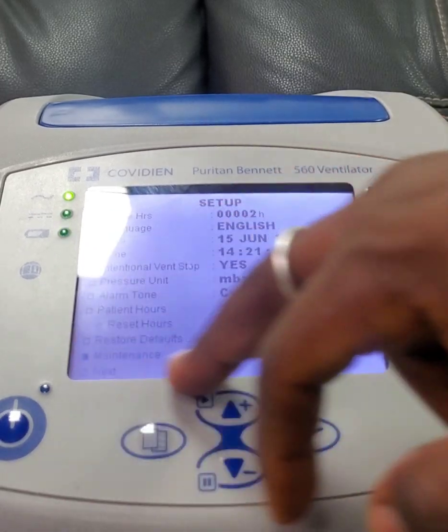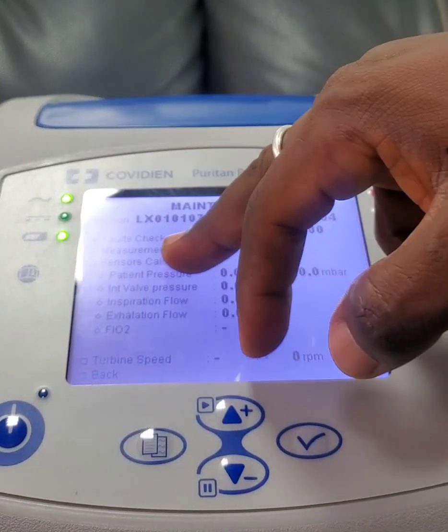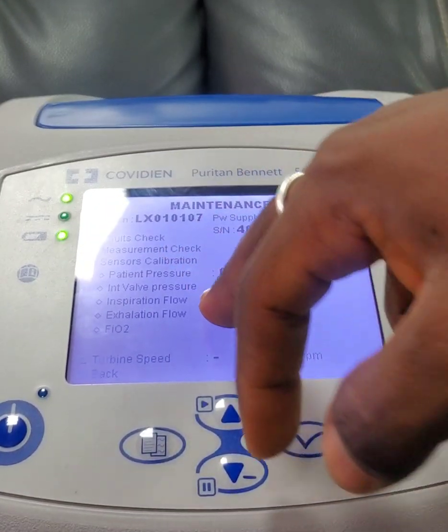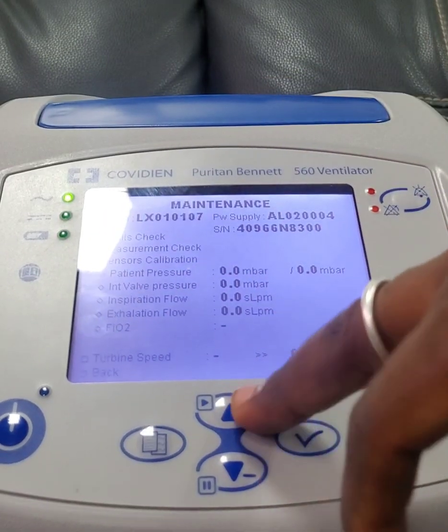Then there is maintenance — you need to check for fault measurements and verify it is functioning correctly.